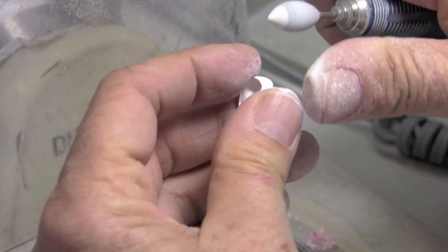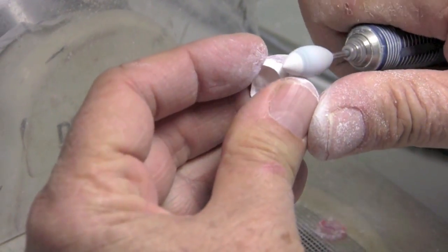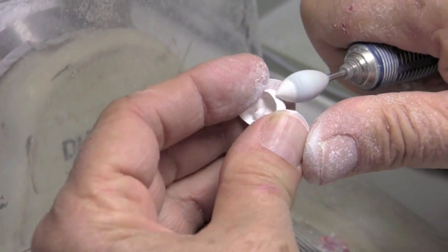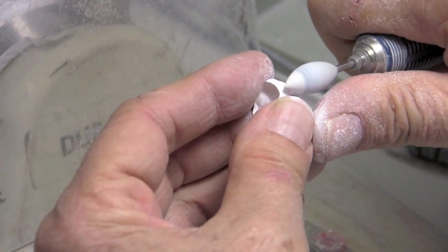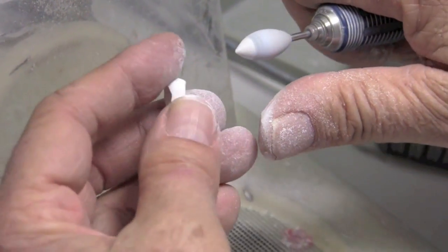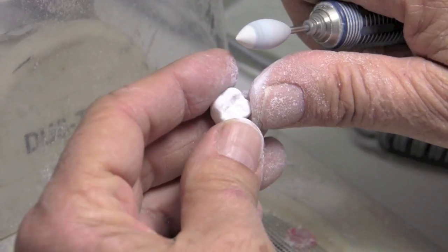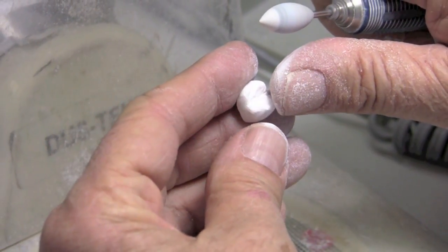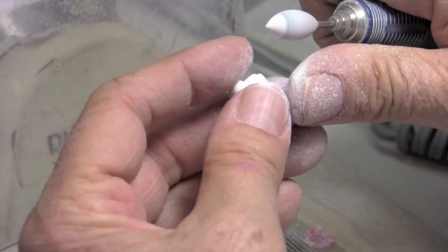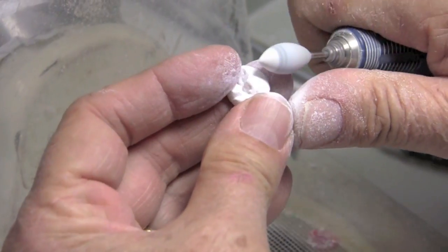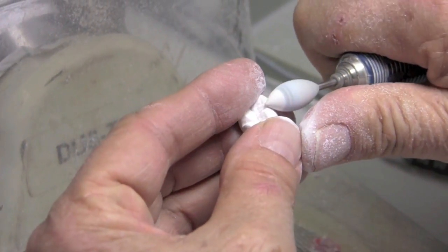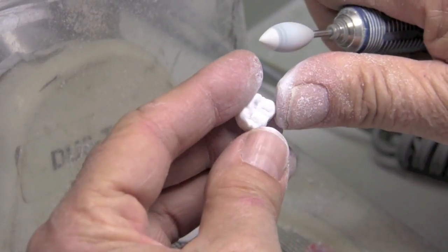But it's really, these tools make it super easy to accomplish a good smooth surface. And even a little shiny. Cause I don't want to, if I can not touch this after I've sintered it, I'm really happy. I don't like to do anything. I don't even like to stain or necessarily even glaze. Cause if I do this right, I can actually just hand polish quickly my zirconia. But again, that's a personal thing and it's up to the individual what they really like to do.